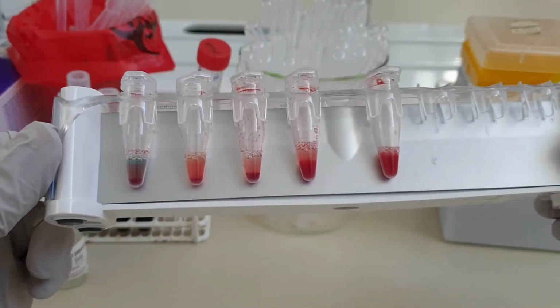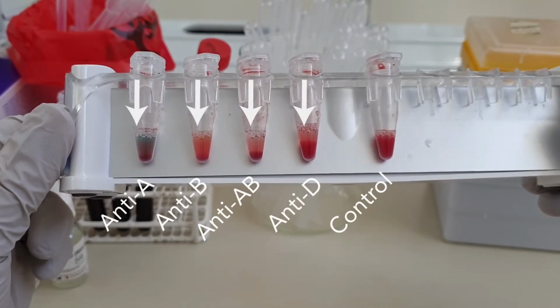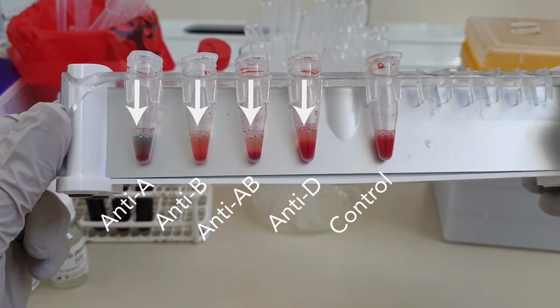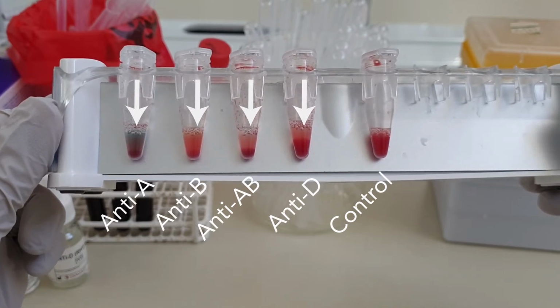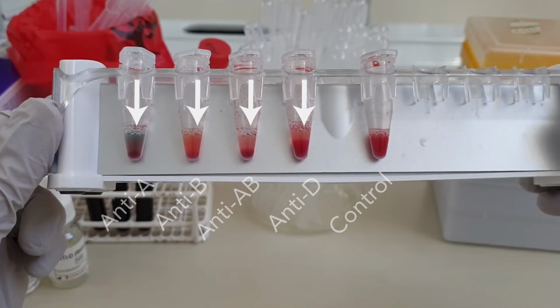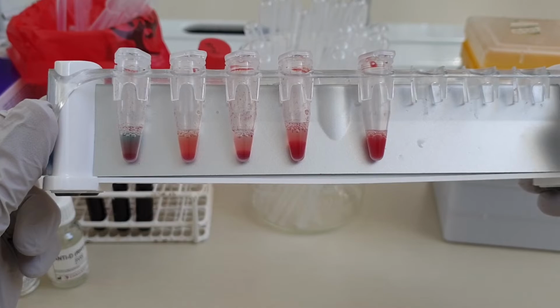Okay, here's our second sample, and it looks a bit different than the first. We have agglutination everywhere except in the negative control. That means the cells in this sample have all three antigens, A, B and D. Therefore the donor was AB positive. Now I'm going to repeat that for our third and last sample.